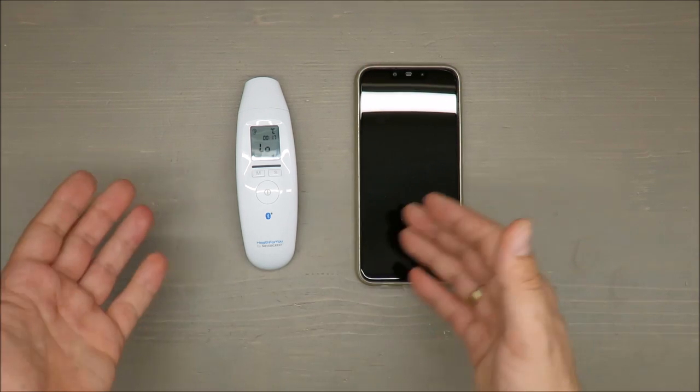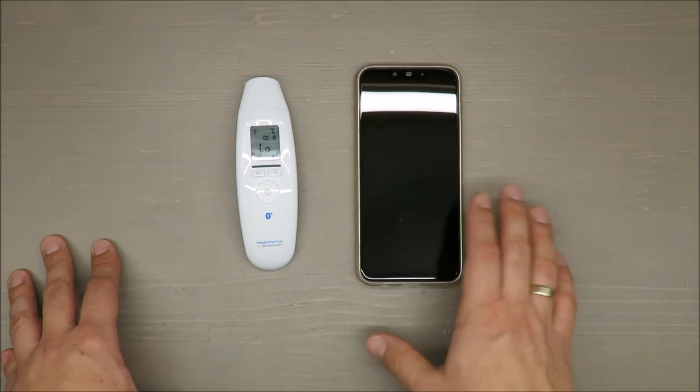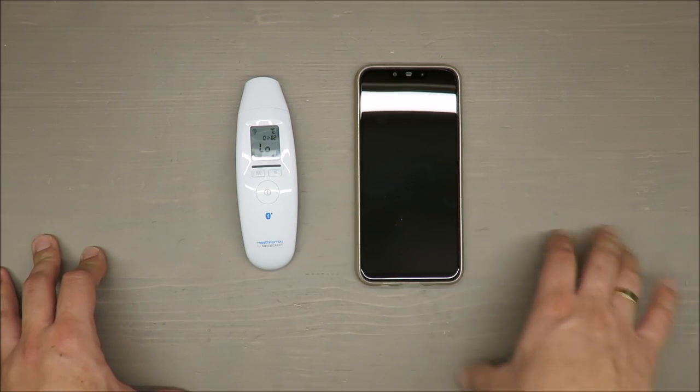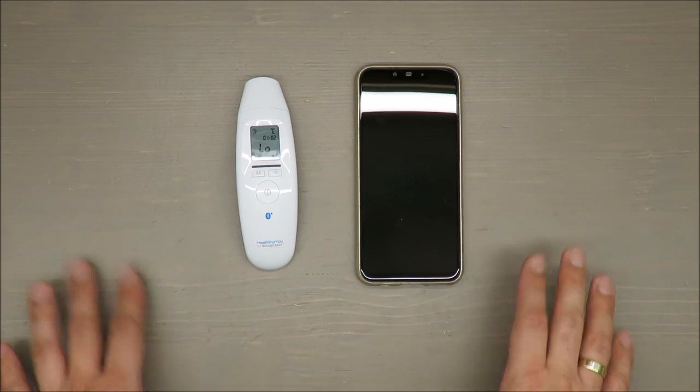I cannot trust this device because the same spot is measuring with totally different parameters. So in my opinion it's a waste of money. I'm curious about your opinion.